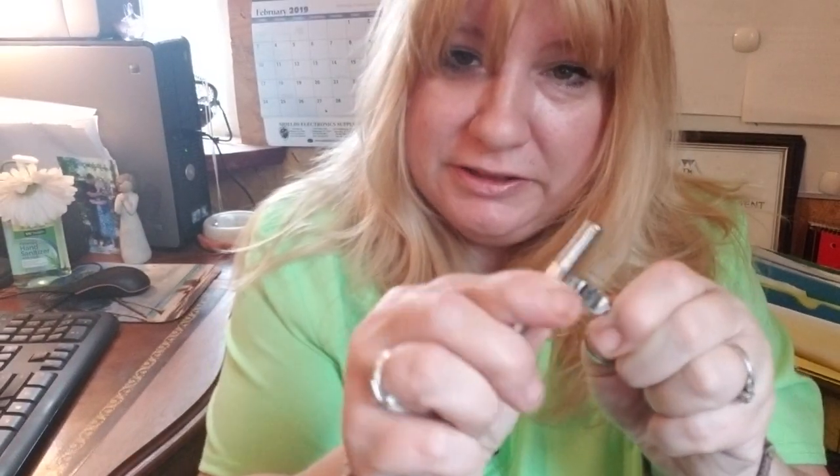If you switch it around, it would be for the lower left and upper right. If you've made creases in it, take the end of your mirror and smooth it like that to make it round. That's the one-on-one on the Toffelmire matrix band — remember there are different sizes, never make a crease, slide it in the slot, and have some pre-made to impress your boss.